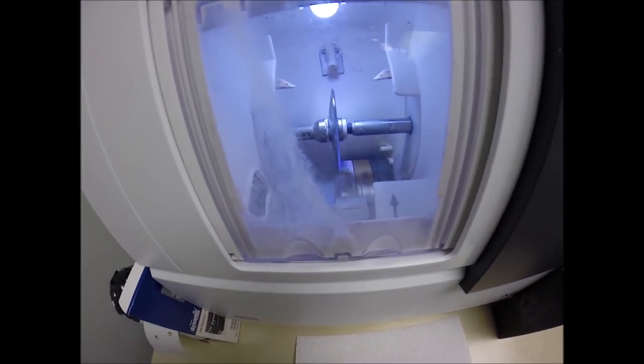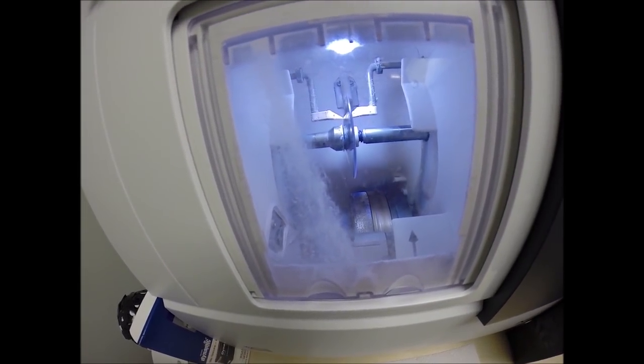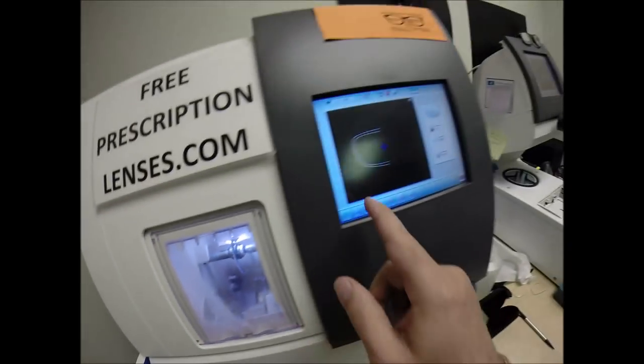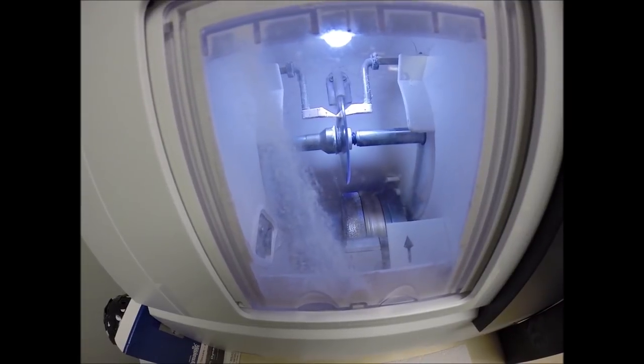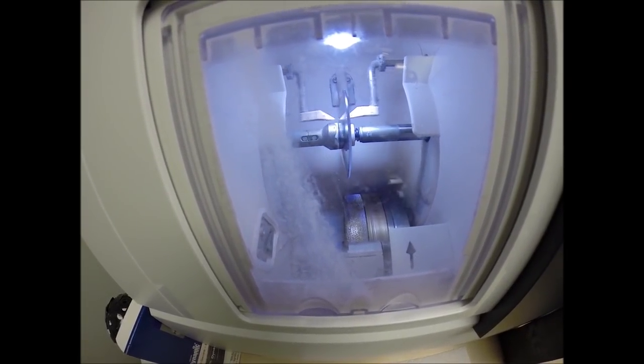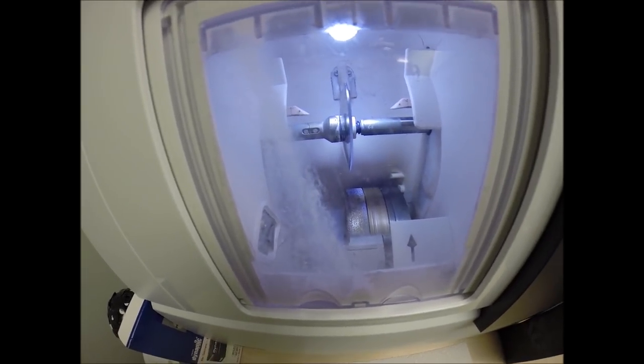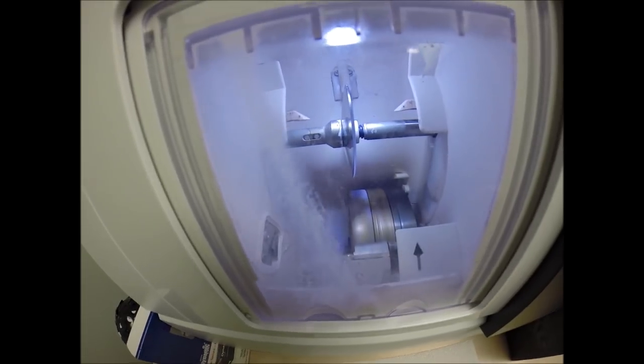In every language, the door closes, the clamp shuts, the lens is going to be traced by two white styluses, making sure that the lens is large enough to fit into the frame. You can see this is tracing the outline of the right side of the frame. And the old carpenter is saying measure twice, cut once. It's measuring the thickness of the lens at every point to know exactly and precisely where to place the bevel. So you have the least amount of edge thickness showing, which with your prescription in this frame will be minimal.